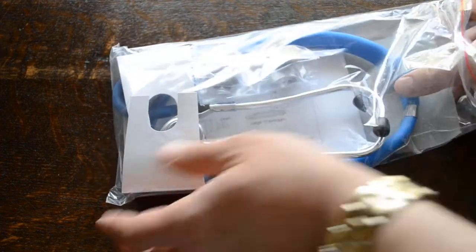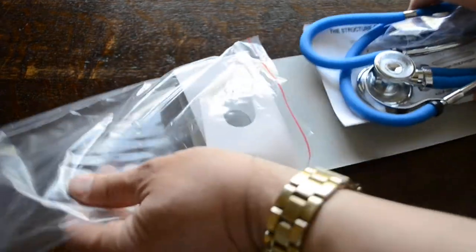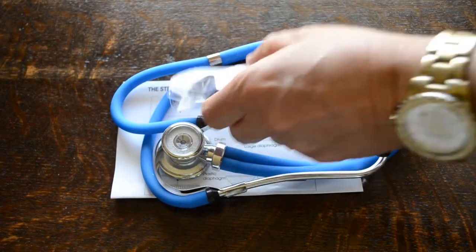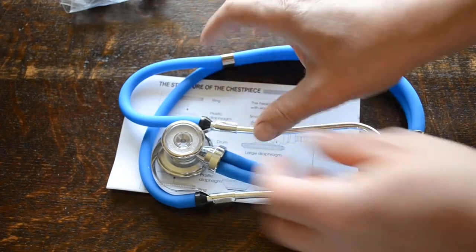You get this lovely rich blue tube Sprague Rappaport. I'll just remove the inner packaging here and take the spares pack away to show you in a second.